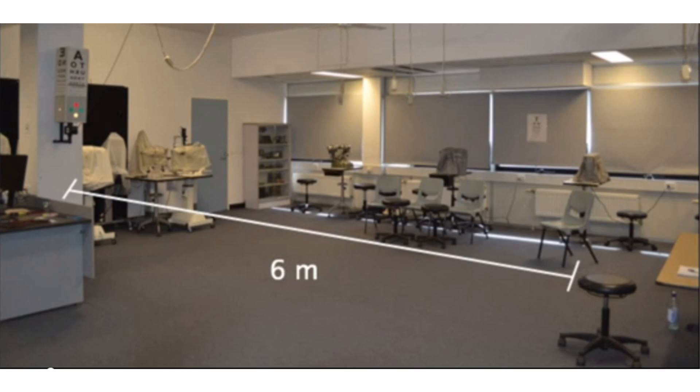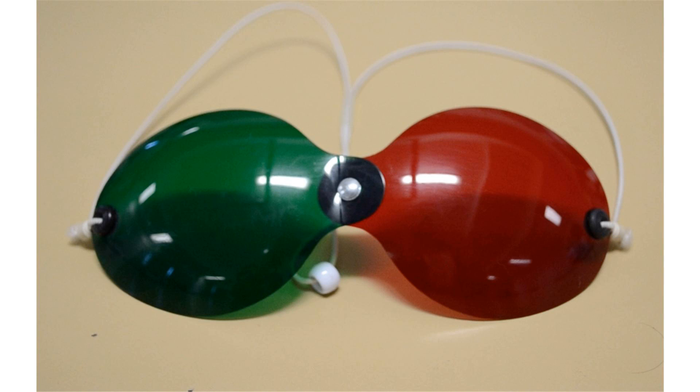It can be used to develop a diagnosis or to support or confirm an initial diagnosis. It can be used when wanting to assess whether the individual has a normal or abnormal binocular single vision response.